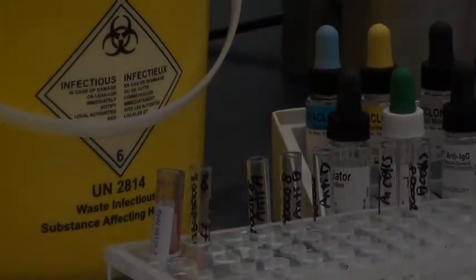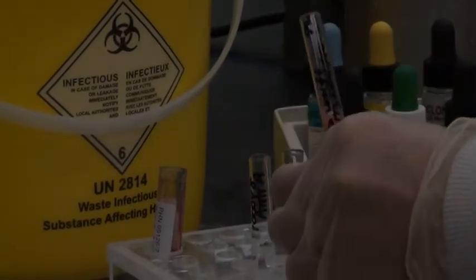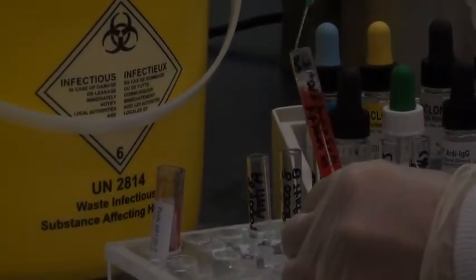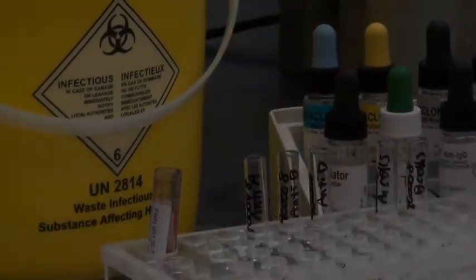discard my pipette, and I'm ready to get my 5% suspension washing. So forcefully add saline close to the top, and into the centrifuge for 45 seconds.